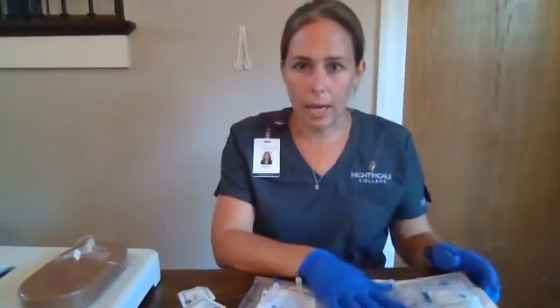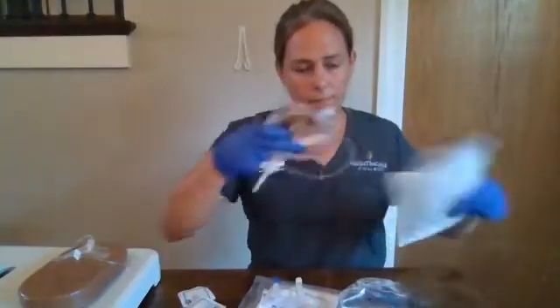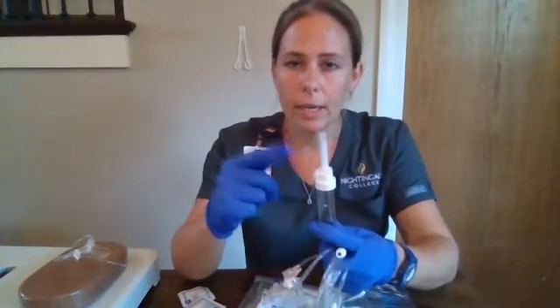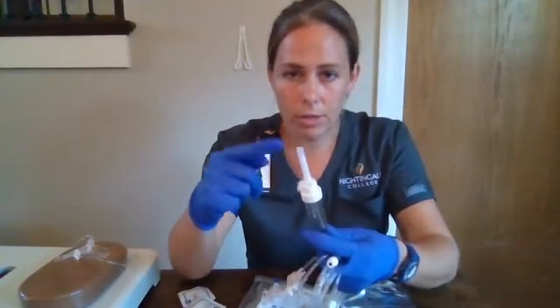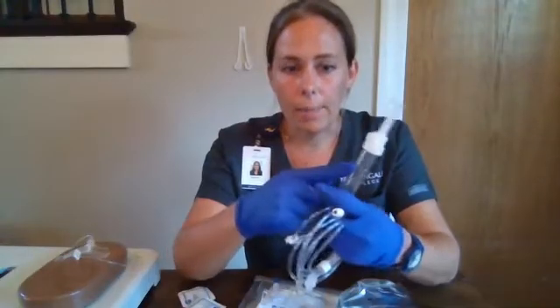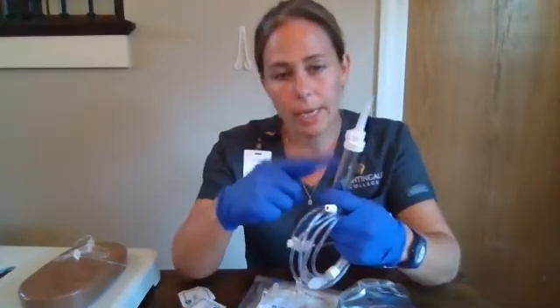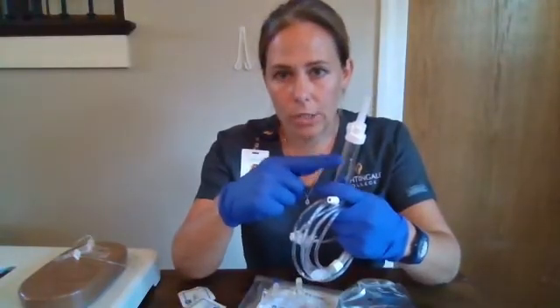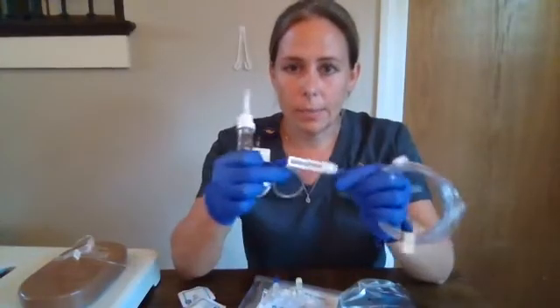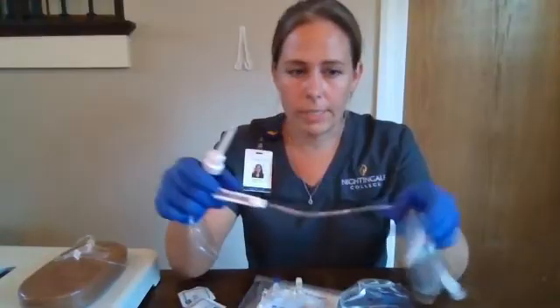So we will spike and prime our primary infusion. On our tubing we have our spike — this is to remain sterile and is what is introduced into our medication bag. We have our drip chamber, which prevents air from entering our tubing and allows us to visualize our flow rate. We have our roller clamp, which allows us to adjust our flow rate. We're going to start with it in the off position.